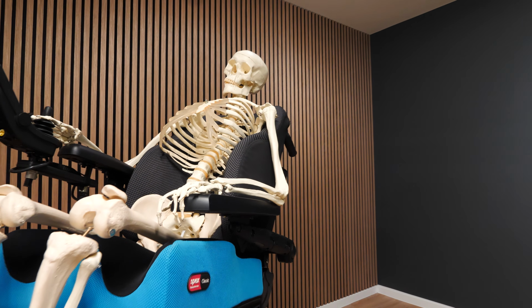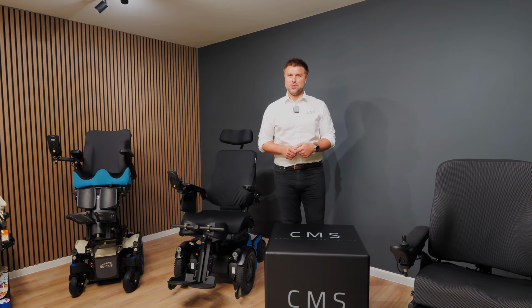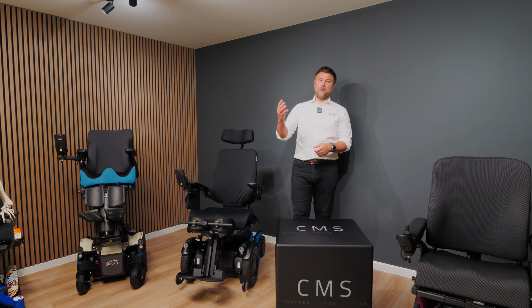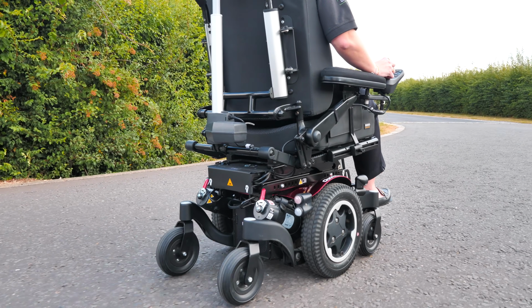In today's video we're going to be exploring subtle changes and subtle differences in sitting position and also controller position that could affect how you drive your chair. So we're going to talk about 4 key factors that could change the way you drive.